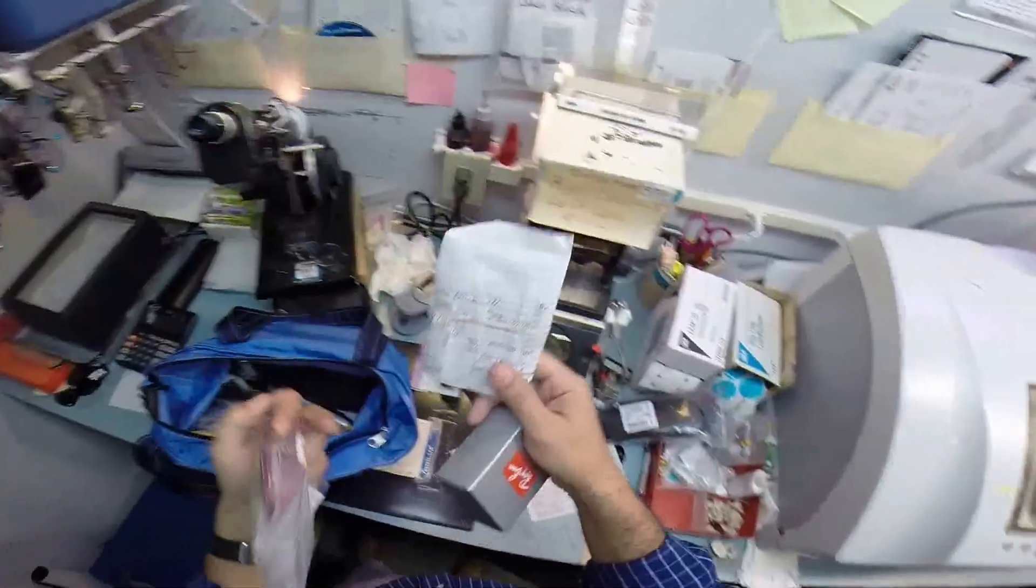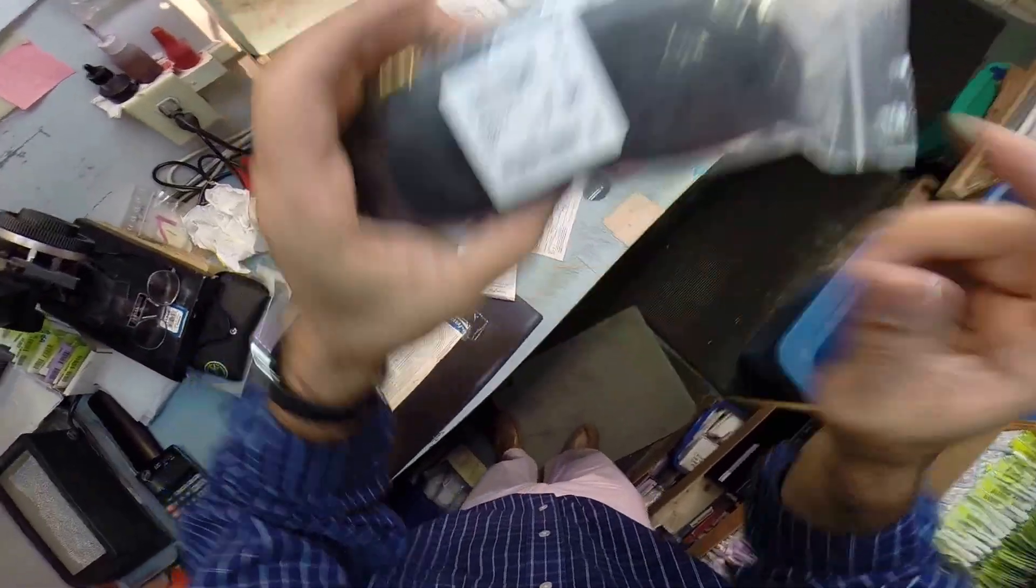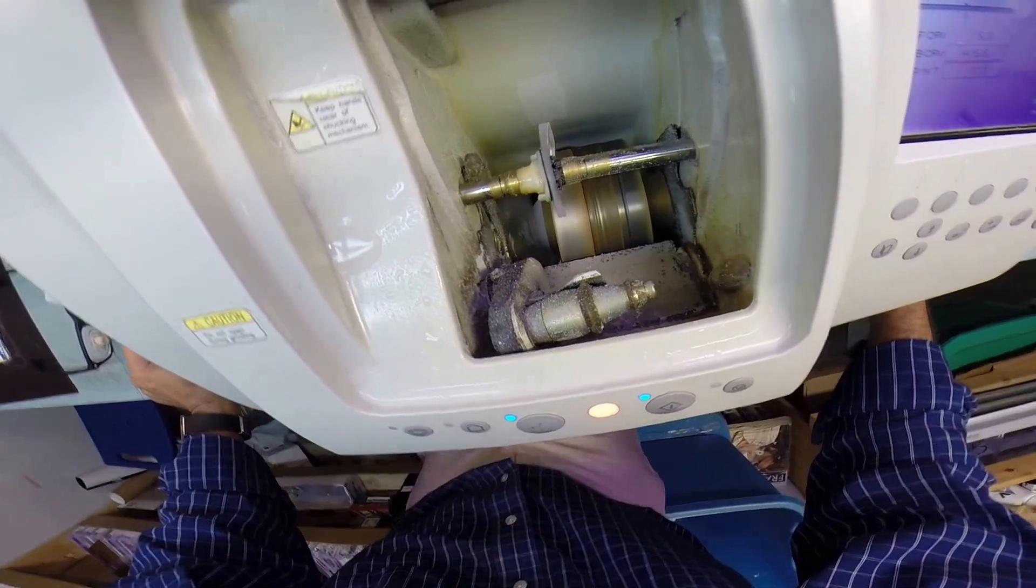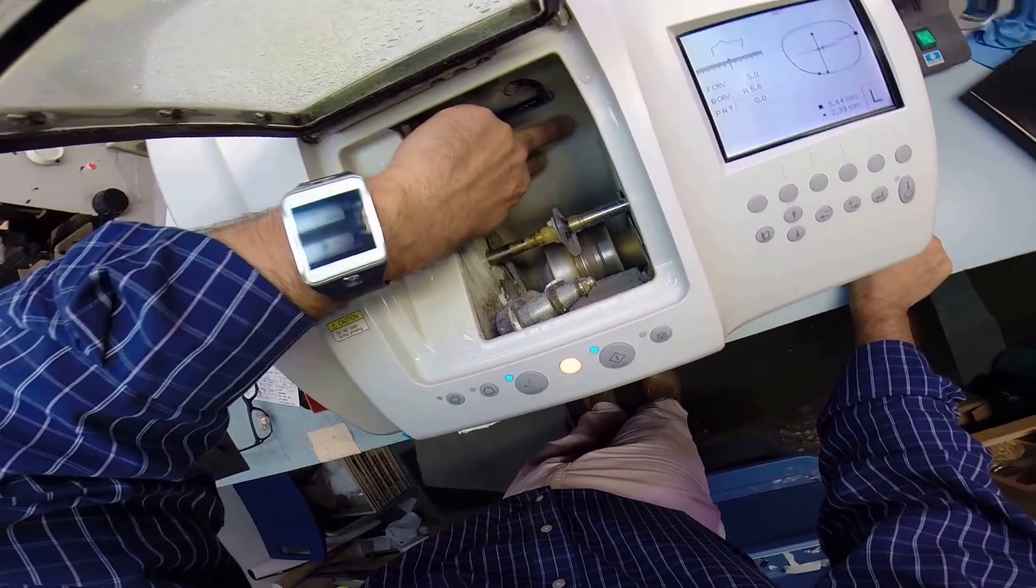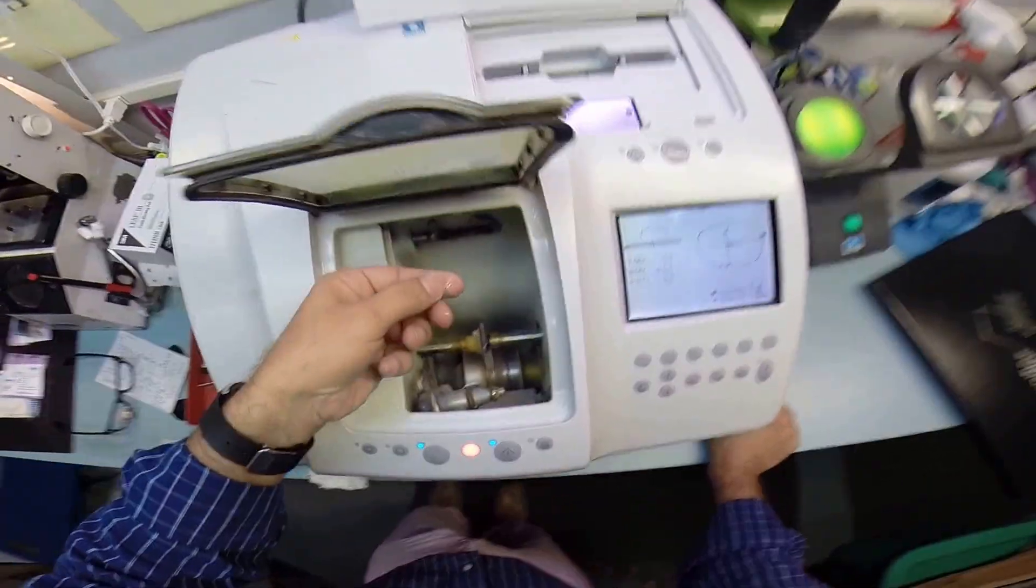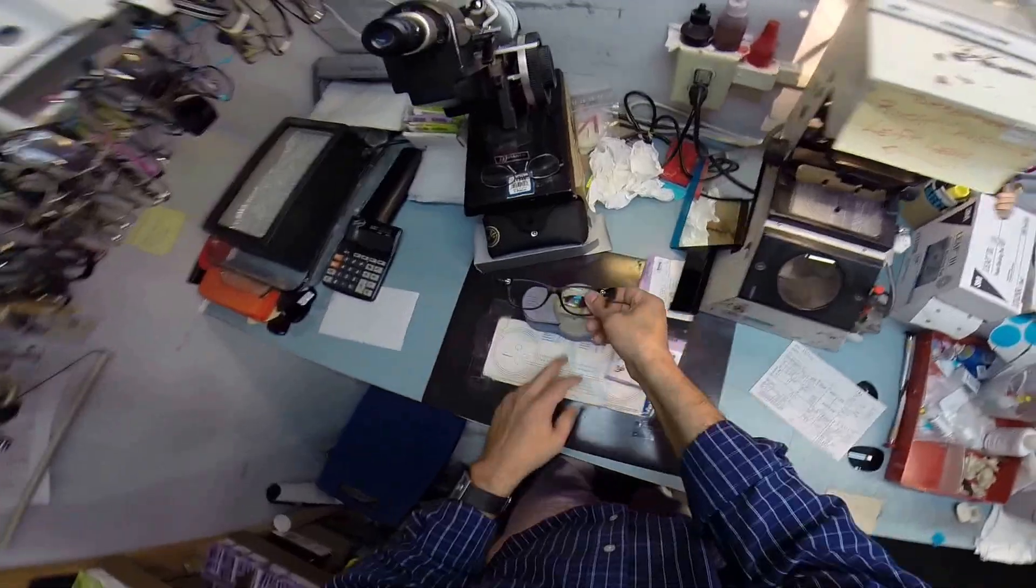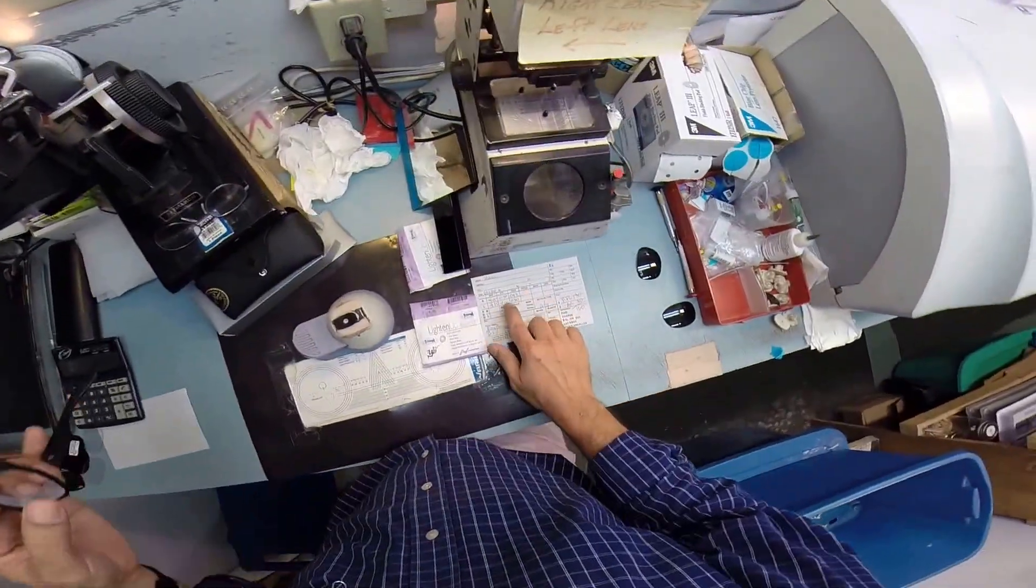So yeah, this is where I work 15 hours a day. This is a kid's frame I got to do. Lenses only for someone else. Another frame. More lenses for someone who's mailing me their Tory Burch frame. It just never ends, man. Your brother's 5154 Clubmasters. And let me go ahead and take this block off the right lens while this is... If you notice, your lens is completely flat all the way around, just like a nickel. It can stand up on the counter if I were to take it out. Now it's getting the bevel put on there. And if you notice, there is water running in the background, but polycarb cuts dry in just a moment. I love picking this stuff off. But some water jets will kick in in a moment just to wash away some of that optical debris. But I'm going to take your block off now. I'm going to take this blue sticker off. It is no longer needed. And I'm going to put your lens back in.